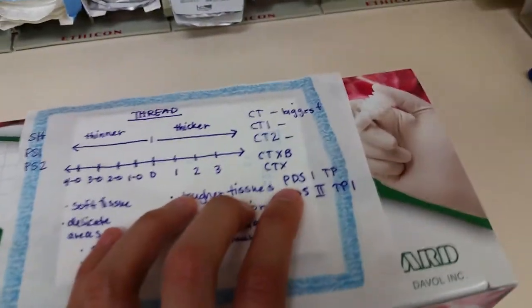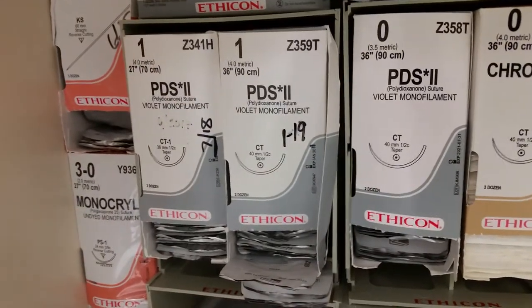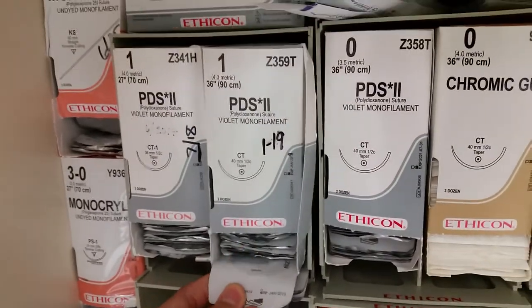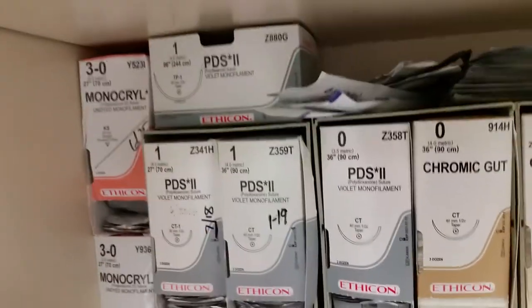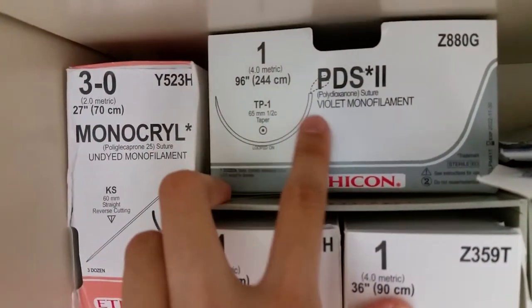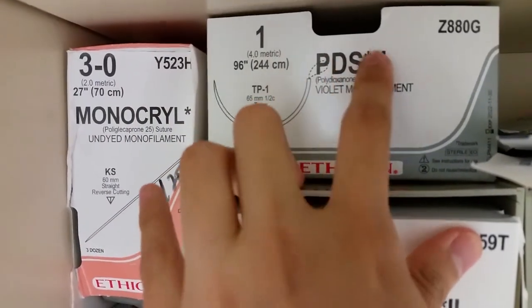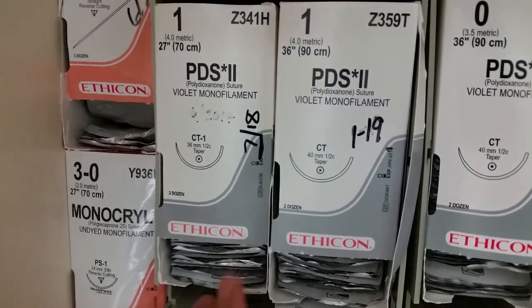Then we have PDS — these are very thick threads and they're high retention. This is a TP1 — look how huge this needle is. And this one is looped, which means it has a loop right there, so it's not just one thread, there are two. These others here are not looped.